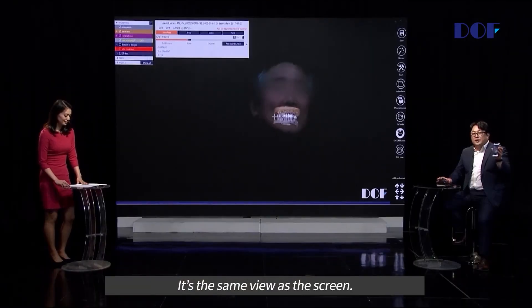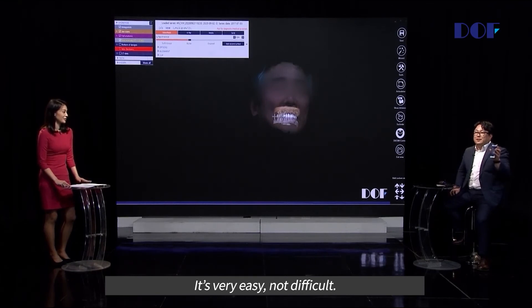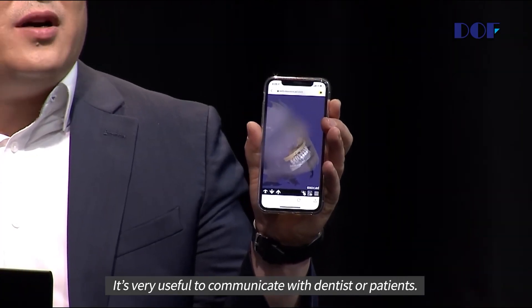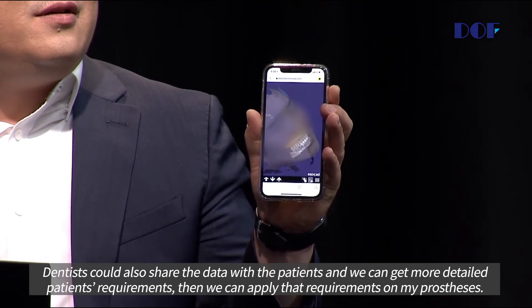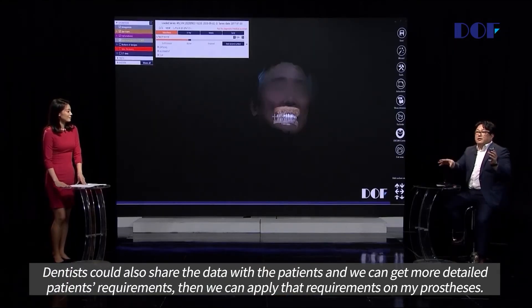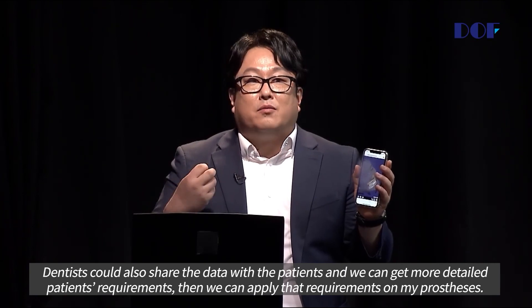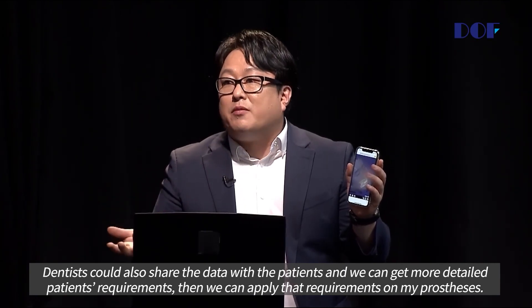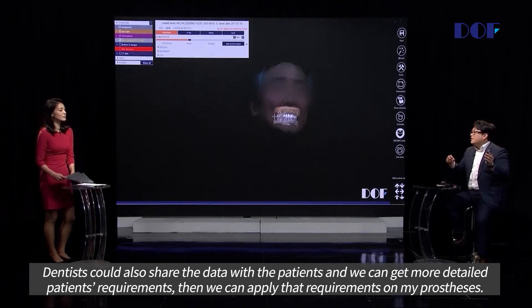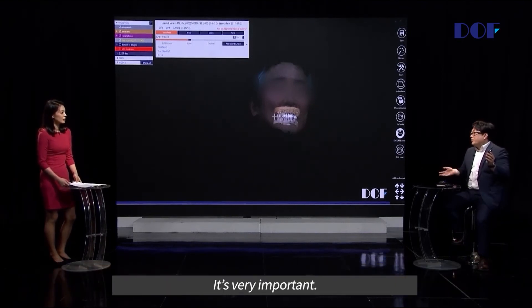It shows the same picture — very easy, not difficult. It's very useful to communicate with a dentist or a patient. We can get more detailed patient requirements and then apply those requirements in the prosthesis design.